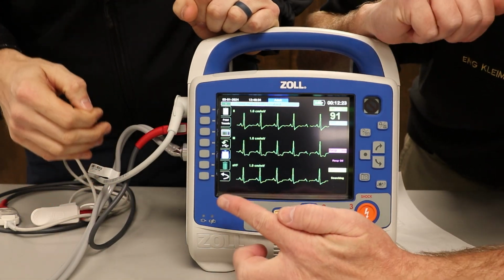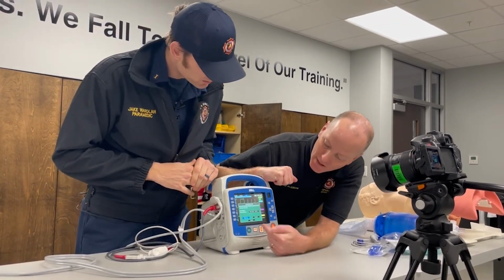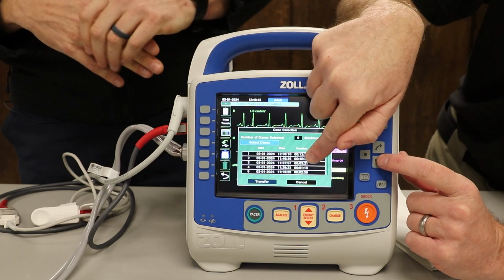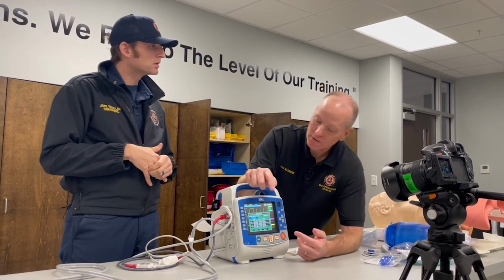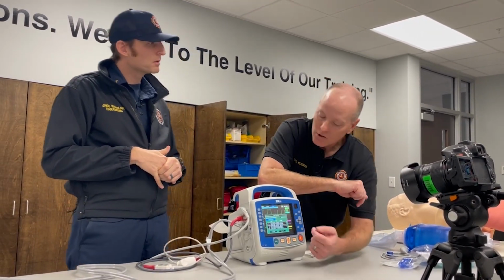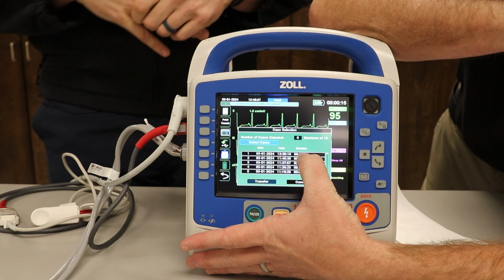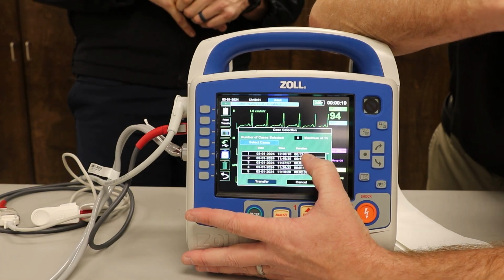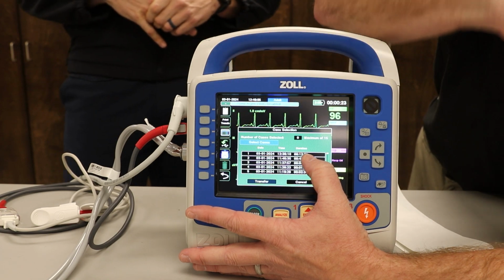Now, once again, everything was based off of the envelope. So I'm going to go to the envelope. Now I'm going to close out this case. And when I close out the case, all I'm going to do is go back to see what my time was and which one it was. Remember, every time we turn this monitor on, it starts a new log. So let's say I had the monitor turned off. I'd go back and look, which one did I have? Well, this one had 12 minutes duration, and that's when I was on scene of that patient. The patient was on there for 12 minutes. So I'd go back and click that one for the 12 minutes.